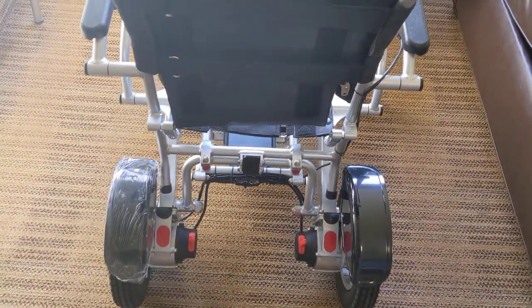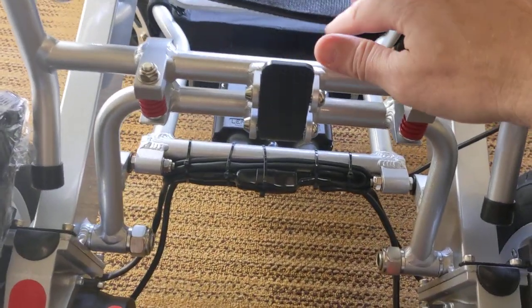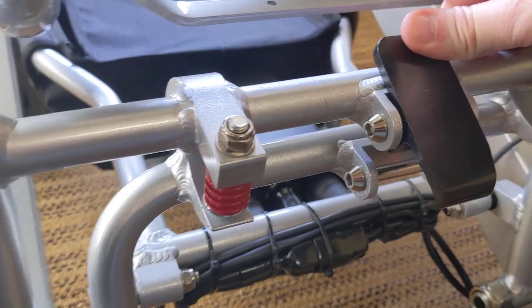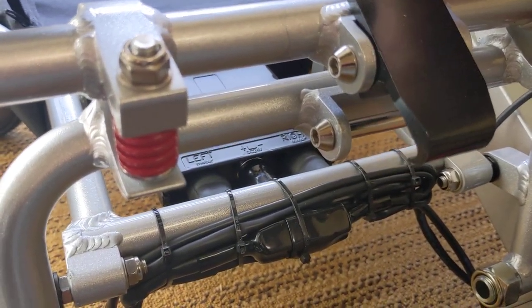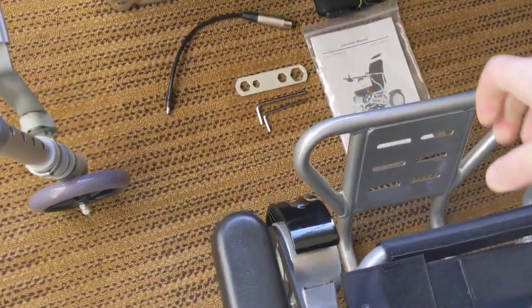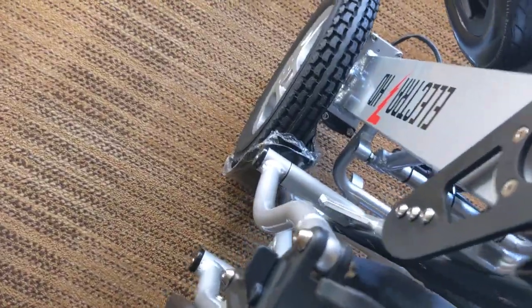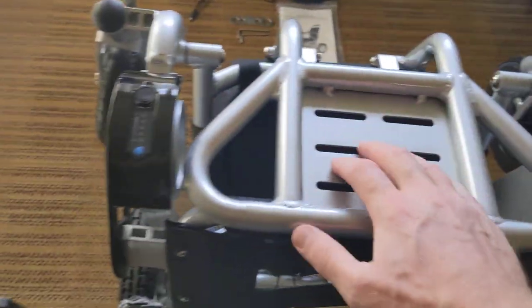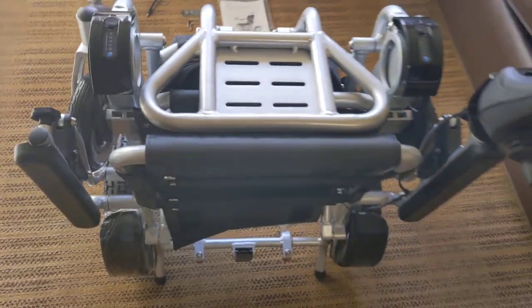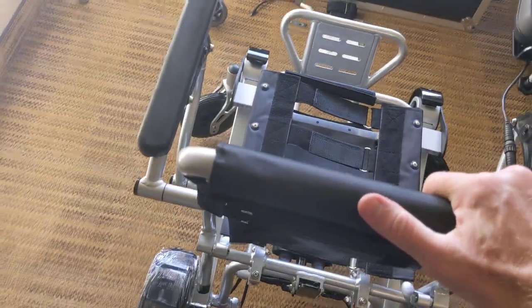Especially if you've watched these videos before about Electra 7s — I haven't had my hands on a brand new one in a while. There is a quick-release latch, so that is an improvement and an upgrade. I just push on the back of the chair as I unlatch it. And even with one hand, it is excessively easy to fold the chair up. Both wheels just need to be out of the way of the frame, and I can finish pushing or pulling the chair to my body. Very simple to fold and unfold.